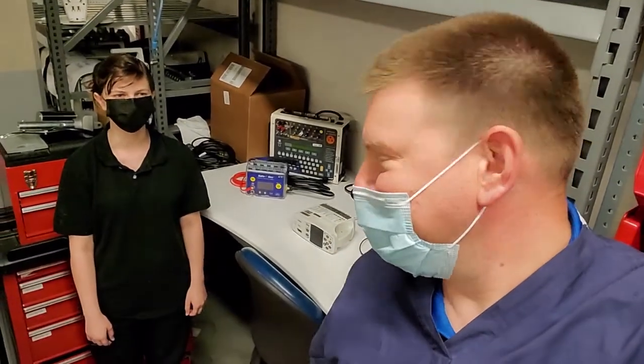Never seen this device before today. So what we are going to do is run her through probably about 30 seconds worth of orientation around the device, and then see if a Biomed 1 who has never seen this device before can just pick it up and run with it and start doing electrical safeties. So let's do this. You ready? Yeah. Alright.